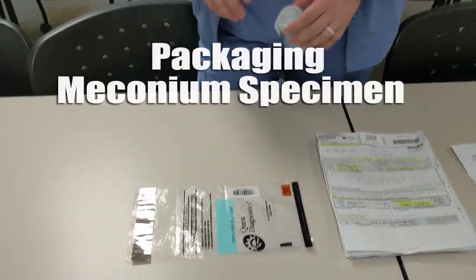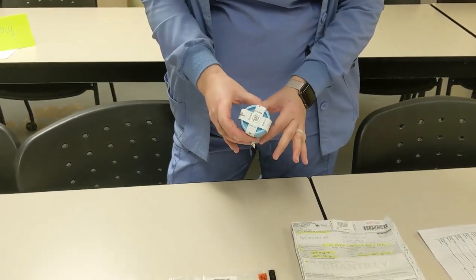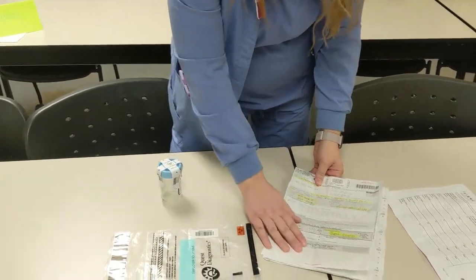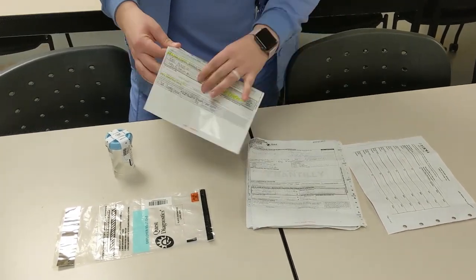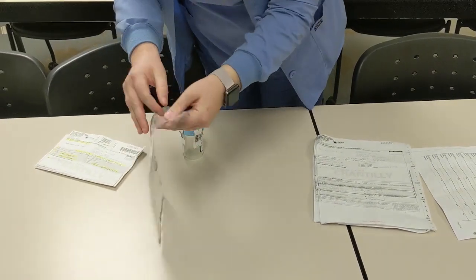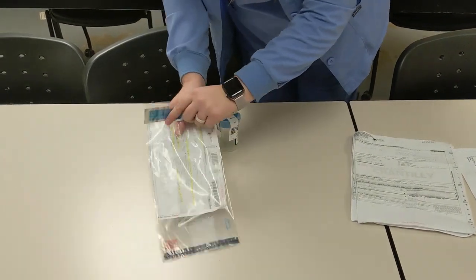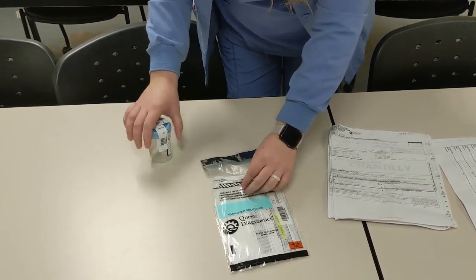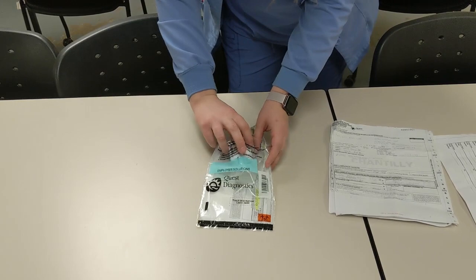All right, this segment is going to go over the packaging of the meconium sample. So it's already sealed and it has your baby label on it. You will have filled out your Quest chain of custody form. I'm going to take the top page, fold it in half, and place in the large pouch of the bag. The lab prefers this one to be in half so they can check it. And then your meconium sample will go in the small pouch.